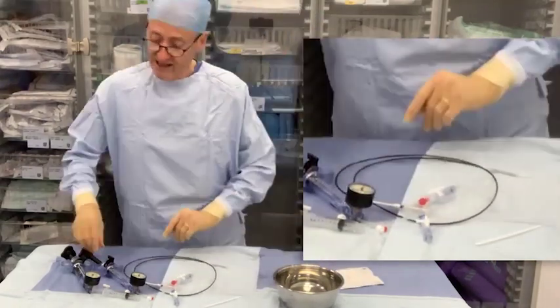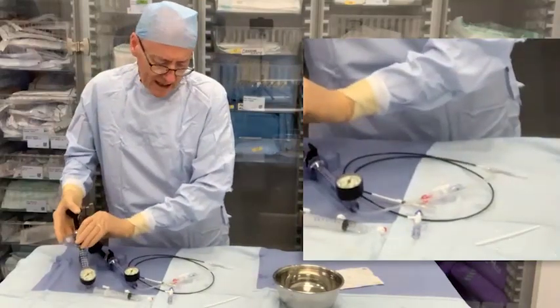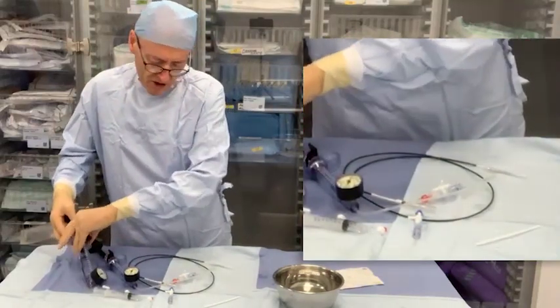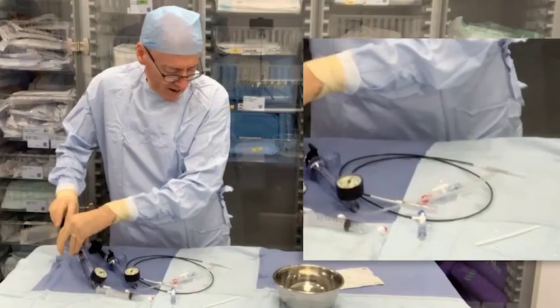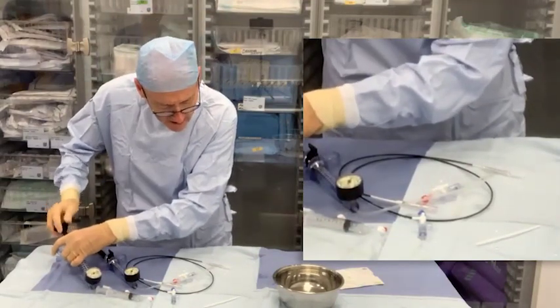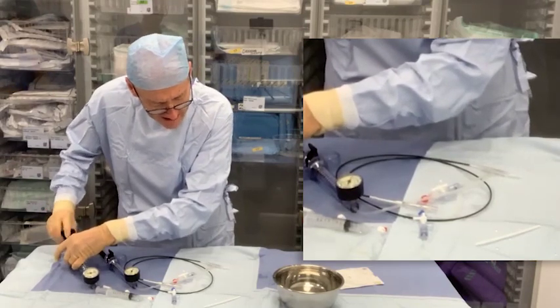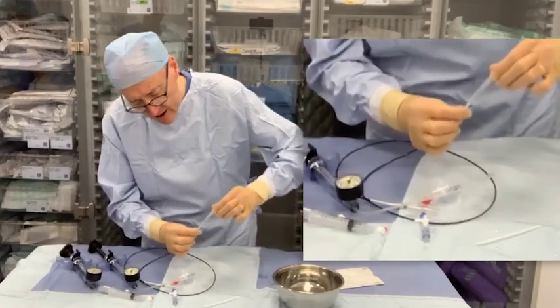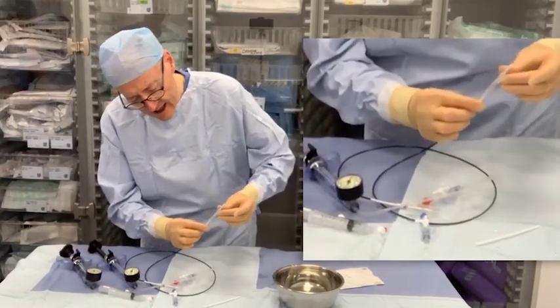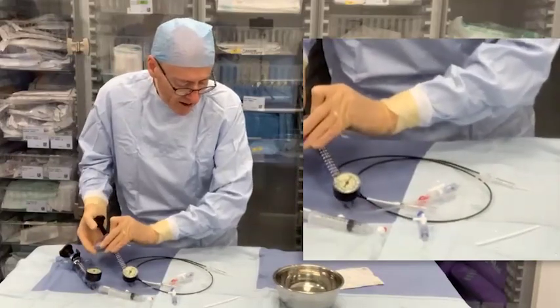So it's worthwhile seeing how the deployment is. The inner balloon has been prepped — we can just do a simple dial-up — and you can see it expanding. It went distal first and then proximal, coming up in steps. You can see the stent nicely expanded.